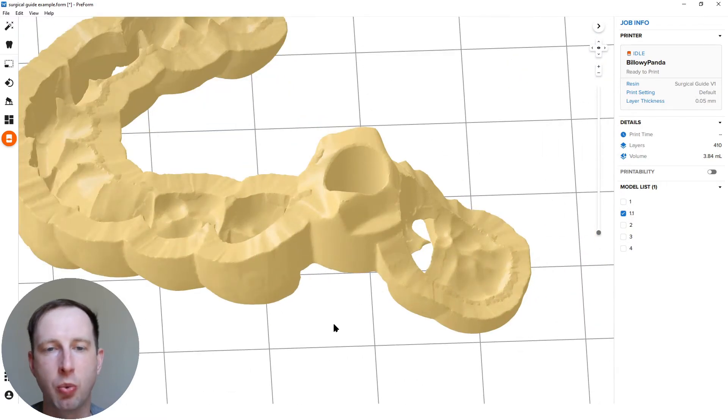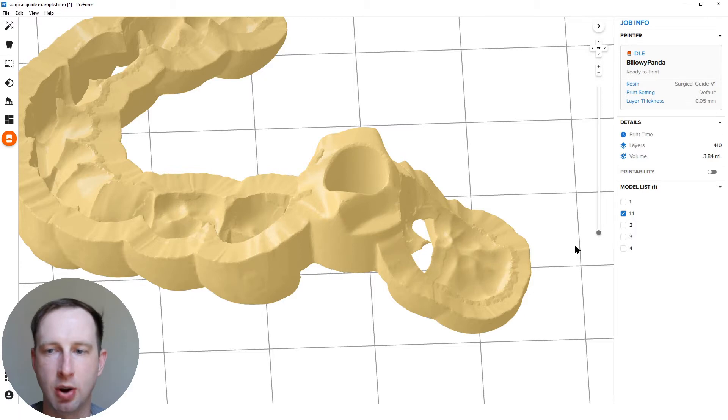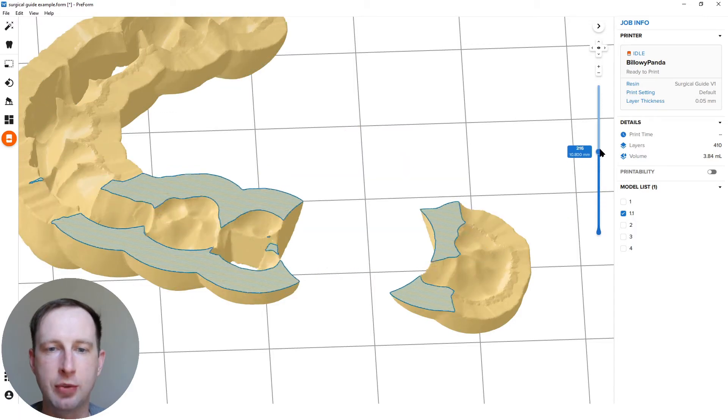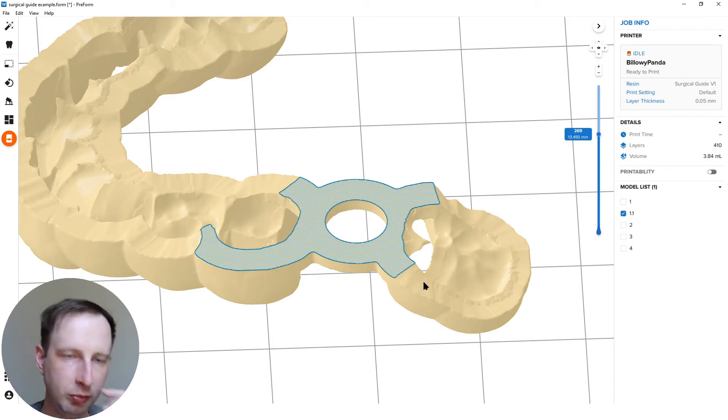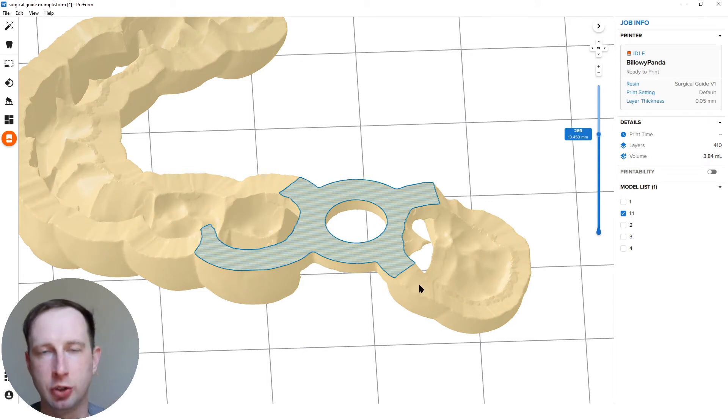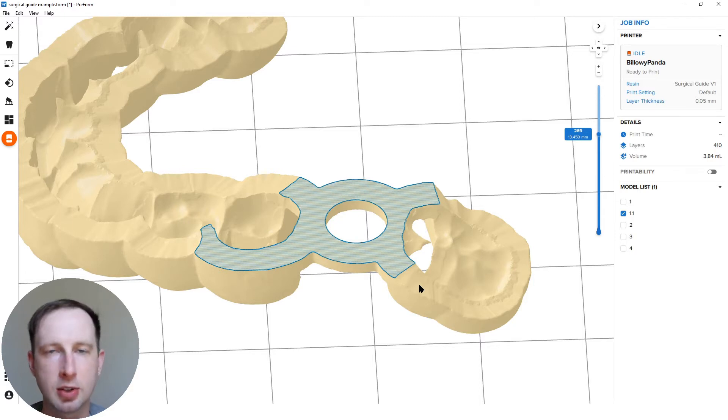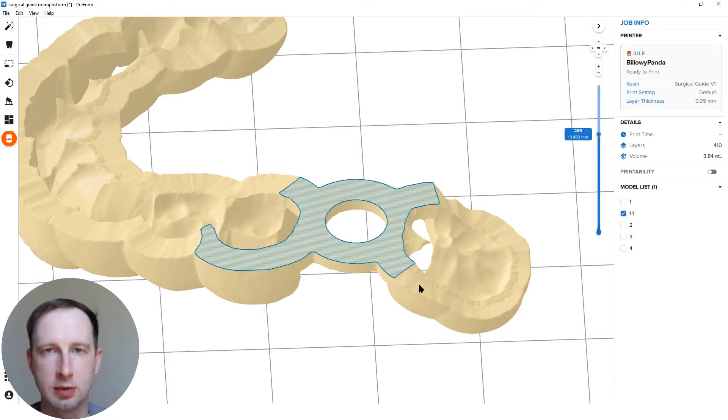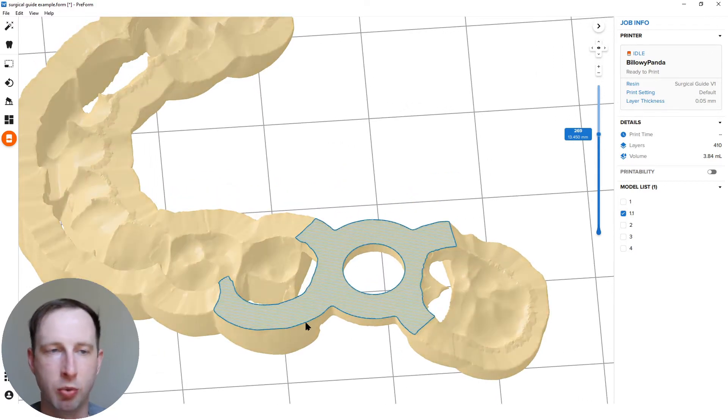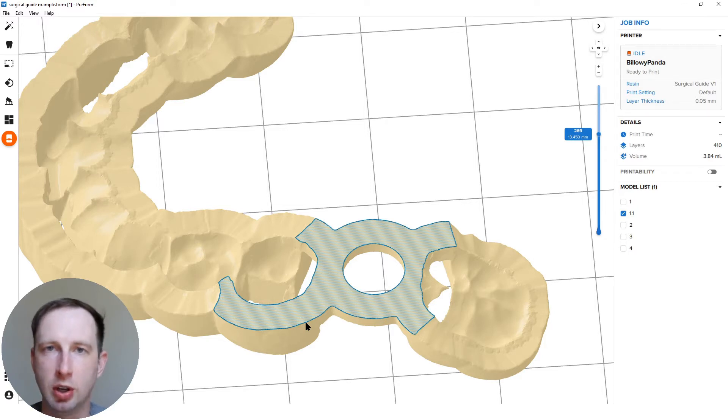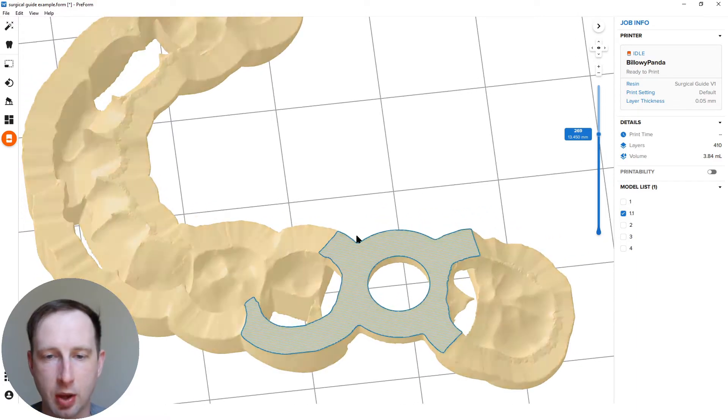And why is that? Because 3D printing prints layer by layer, either 50 or 100 micron layer at a time. And if you have angulation, the surfaces of that hole start to have steps to them with jagged edges, which can, in some cases, especially if you're dealing with really tight to begin with offsets of the sleeves, be too tight. You can print a case that's set up like what I'm showing and then one that's set up with 15 degrees angulation, and you can have two completely different fitments. And that's why.